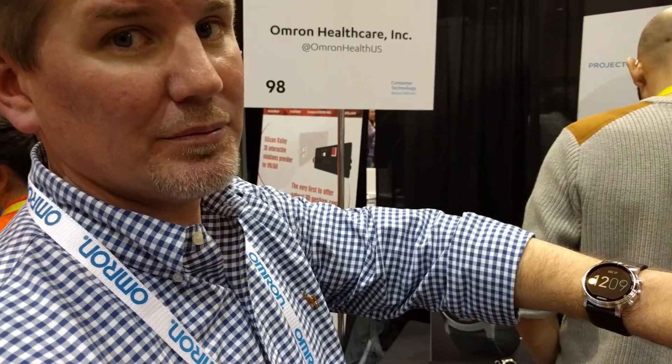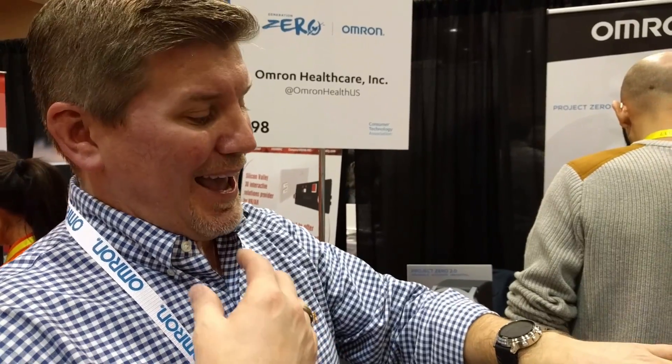Who is this aimed at? There are 73 million people that are hypertensive and another 65 million that are pre-hypertensive, meaning probably one out of every two people should be monitoring their blood pressure. Just think about all the celebrities we lost this year — many from heart-related illnesses. A lot of that could potentially have been prevented had they been keeping track of their heart health. What we're trying to do is put the power to manage your heart health literally on your wrist, so you can know what's going on every single day.